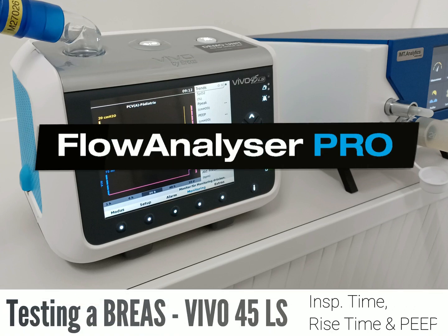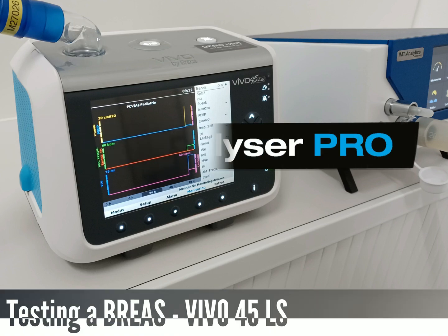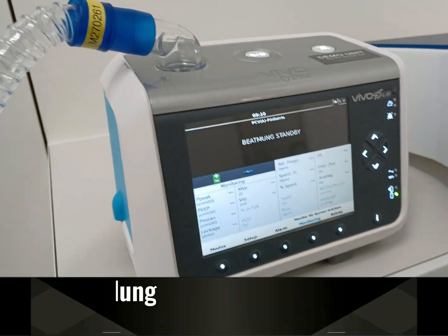Testing of BreaS Vivo 45 LS: inspiratory time, rise time, and PEEP.